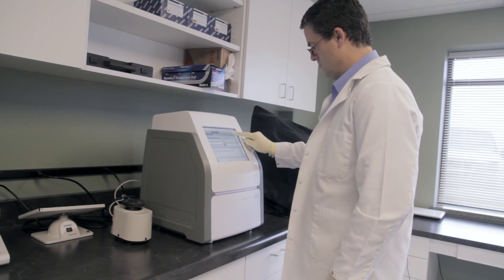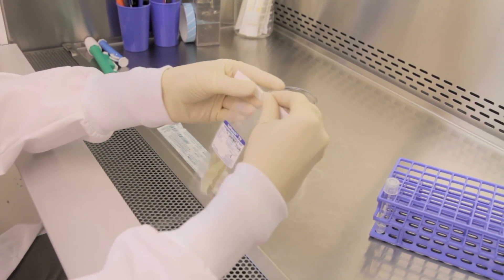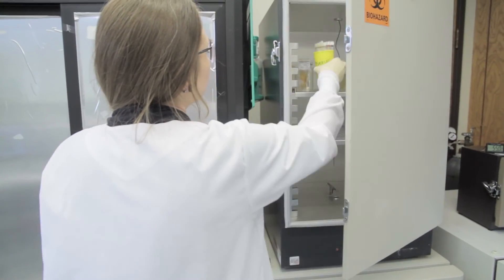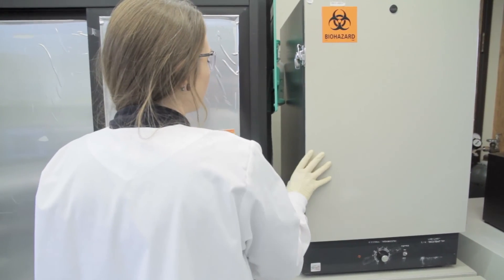And as with all Biomed devices, the shelf life of our proprietary media is up to 12 months from the date of manufacture, saving you time and money by reducing waste driven by late or out-of-date media.